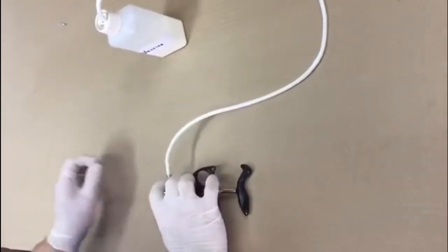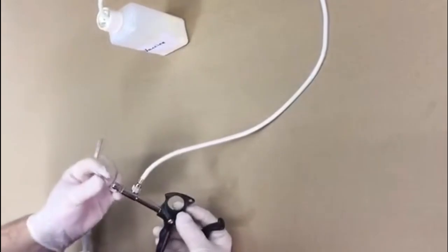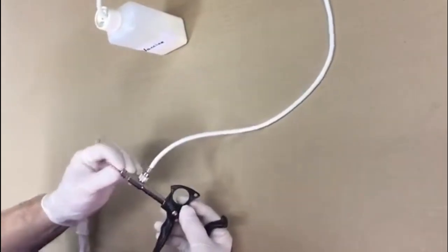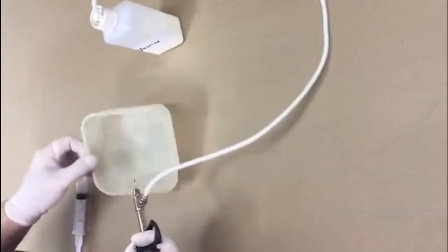Detach the small tube from the syringe. Attach the needle. Fill the needle by pressing it a few times to make sure the vaccine is coming through.